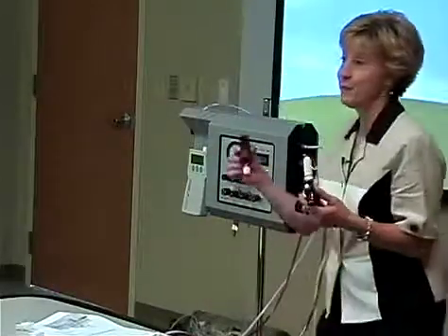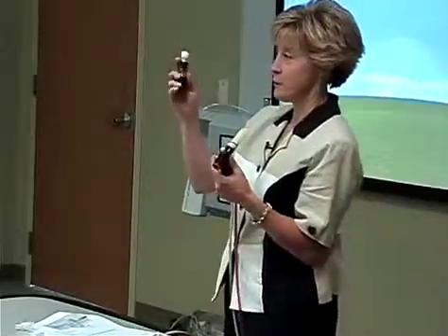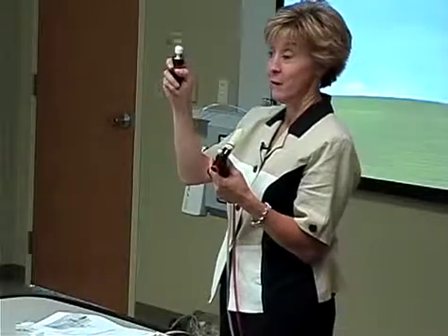And that happens, you know, when these drop, these break off. So as I said last night, you always carry a spare phasitron and parts. And we'll go over why even more in a minute.